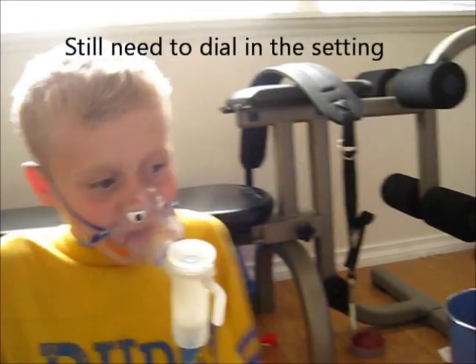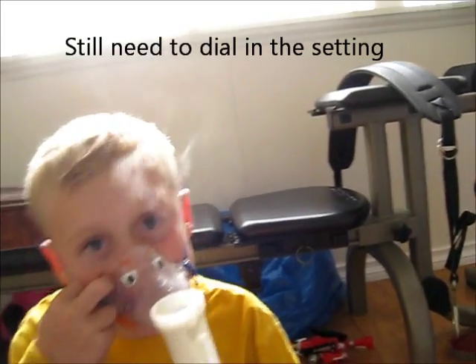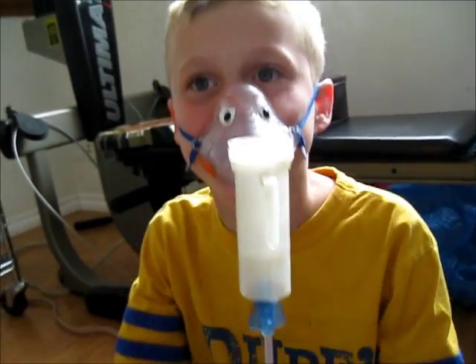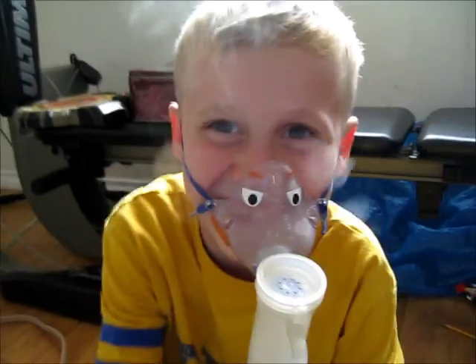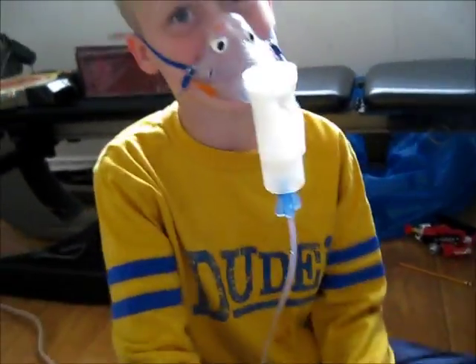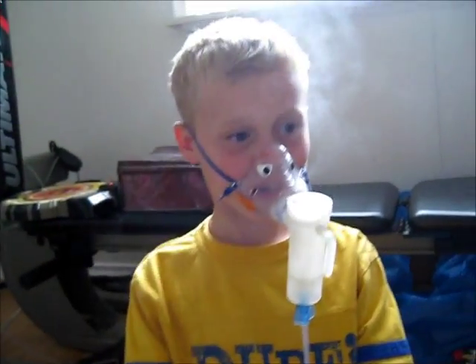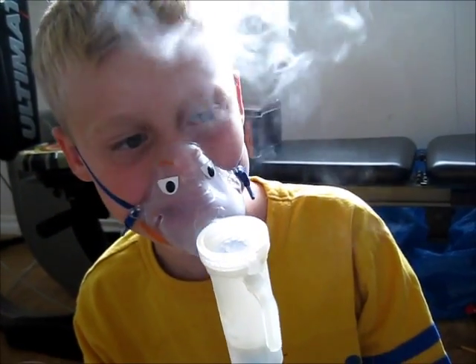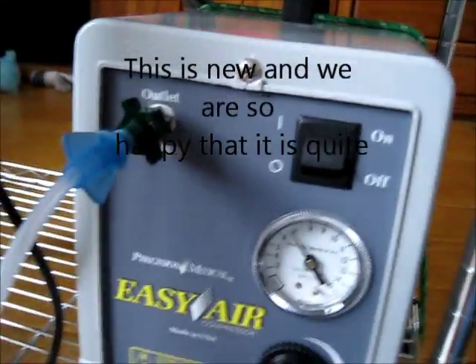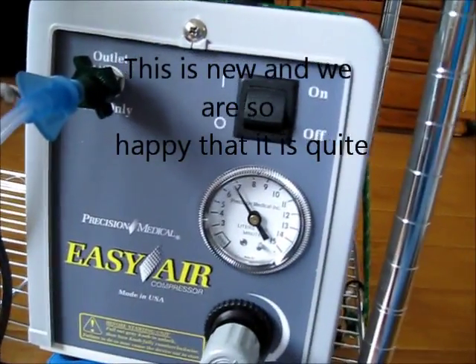Michael, any comments? How's it feel? Good, because now we don't have to turn the TV up to like 32. Okay, so it's all about the TV. We also read books. Sometimes when it's super loud I can't even focus. We can also dial it down if it's smoking too much. It's very specific here with liters per minute flow and I'm able to adjust it.